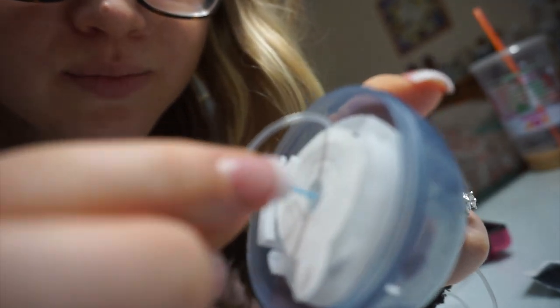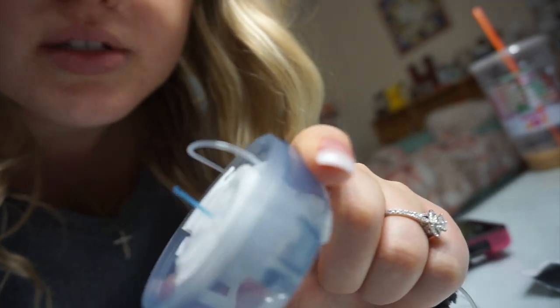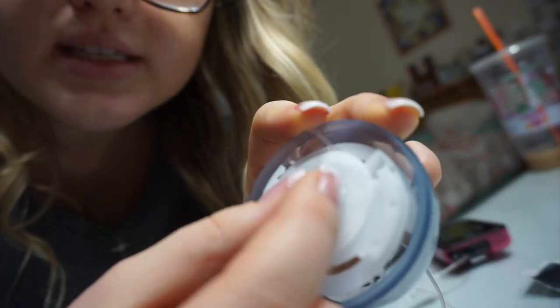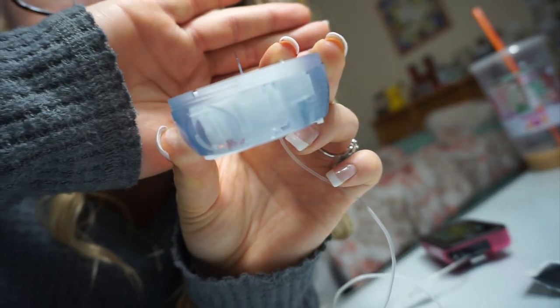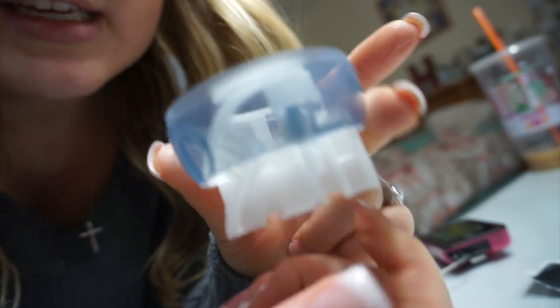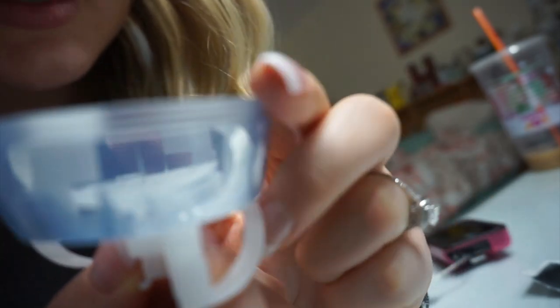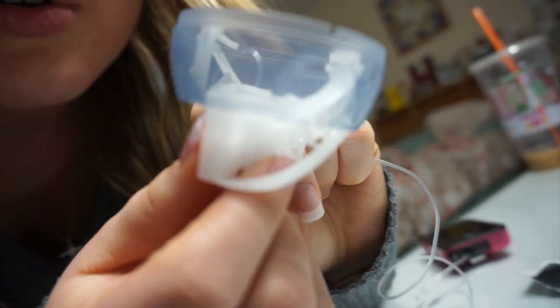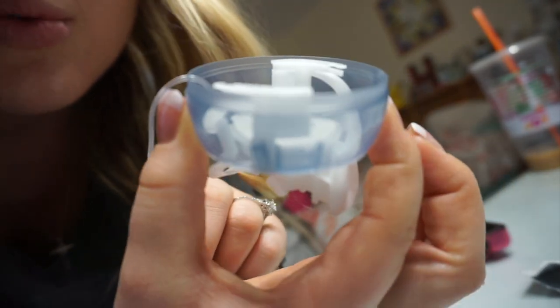Now that the insulin has been filled, it's a little bit wet with insulin so you have to peel off this backing — be very careful not to dislodge it — just lightly peels off like so. Then the last step to get it prepared is to twist off the plastic blue capping on the needle. Now you're looking right at the needle, and you pull back using these — you just pinch and pull it back until it clicks. You want to move the tubing into one of these small slits on the side to get it out of the way. The part you squeeze to release is the really smooth flat edge, and these two pieces on each side are where you push so it bounces right onto the skin.